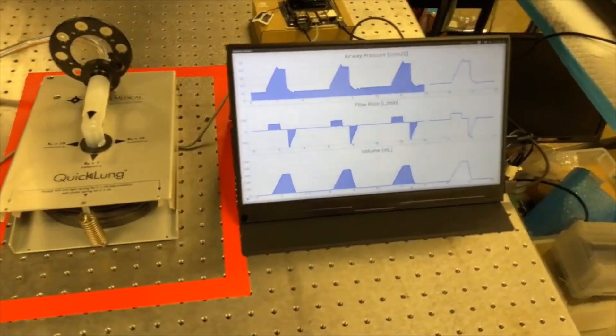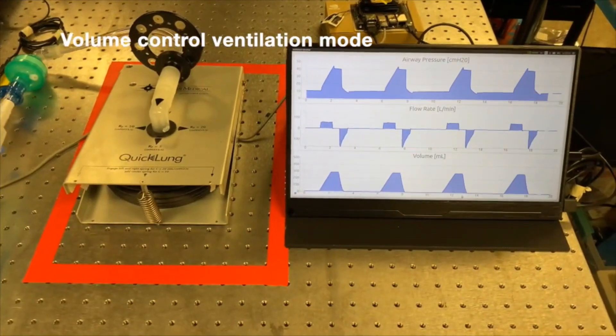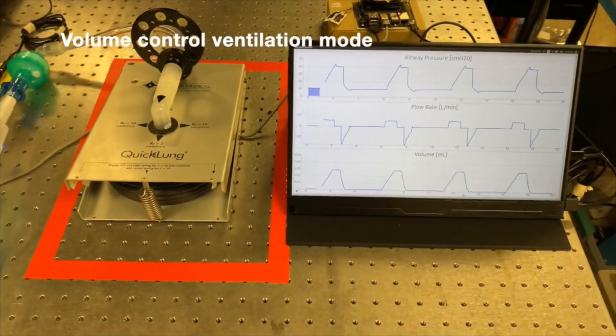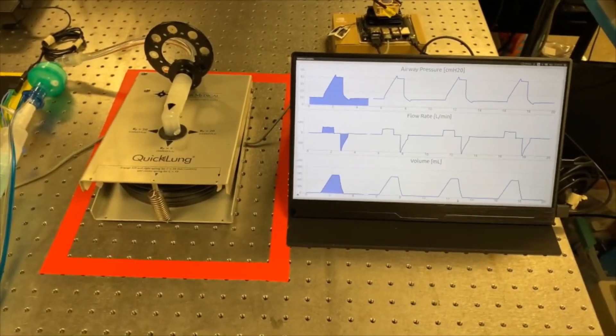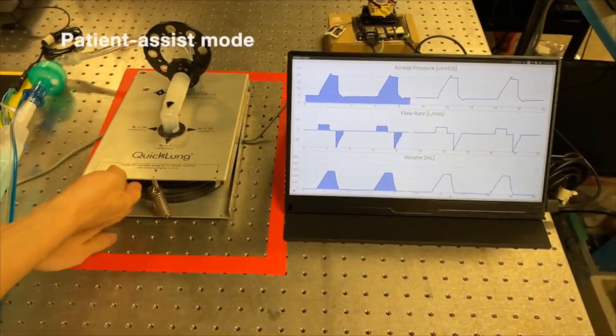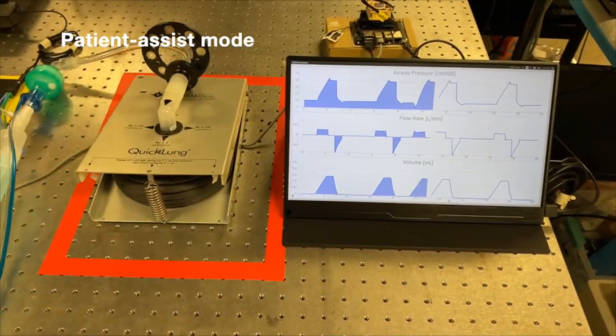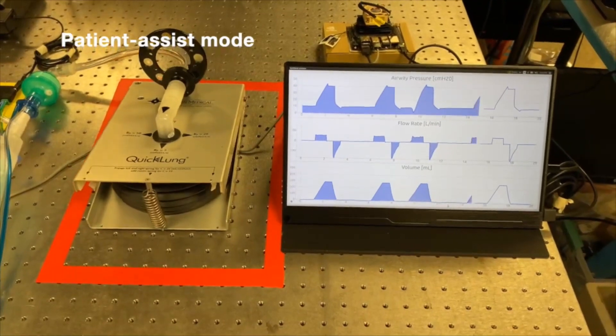It's incredibly important to give clinicians the knobs to be able to take care of the patients in the best possible manner. The ventilators have been breathing for the last couple of days now, and very soon we're moving our work into reliability testing to really test these ventilators for the context of long-term use.